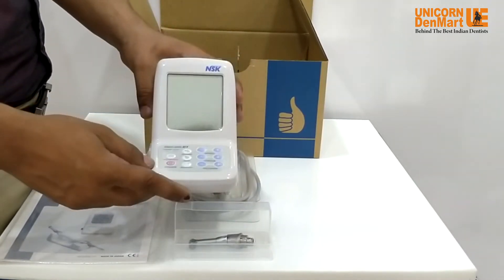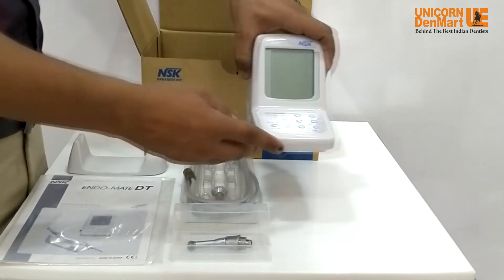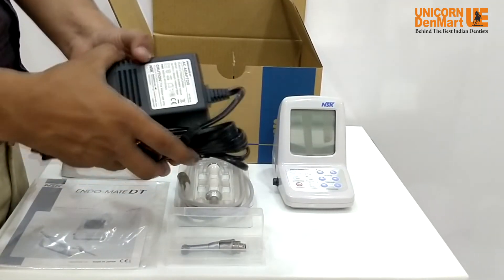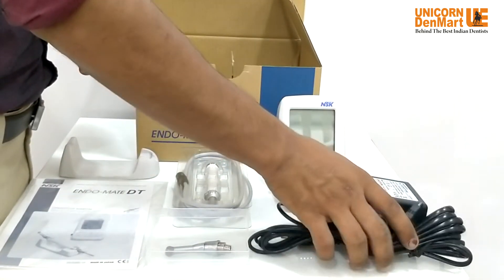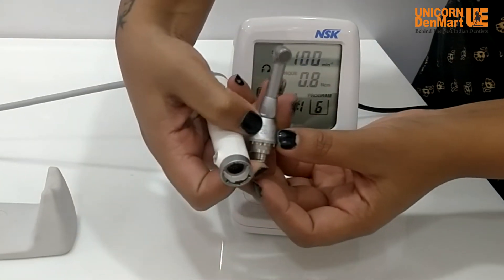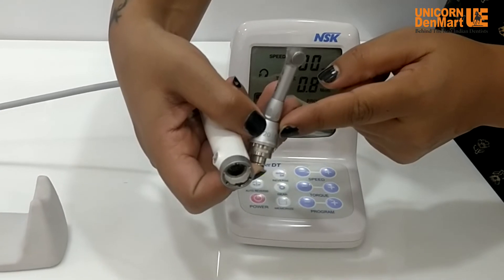Here is the main control box with touch buttons to select various parameters for performing operations with utmost precision. This is a power adapter with cord to charge the lithium-ion battery for continuous operations. This push-type ultra miniature head allows for fast and easy exchange of rotary files during procedures, and the compact head offers excellent visibility of treatment spots.